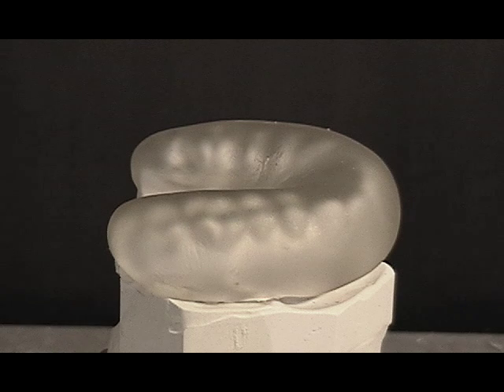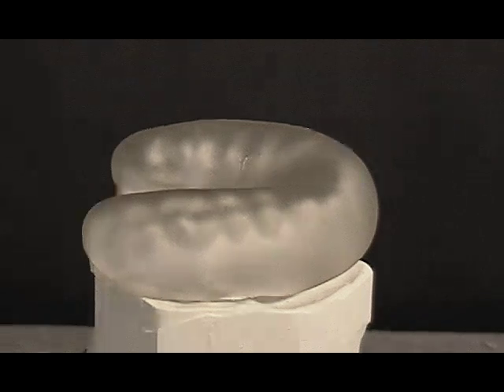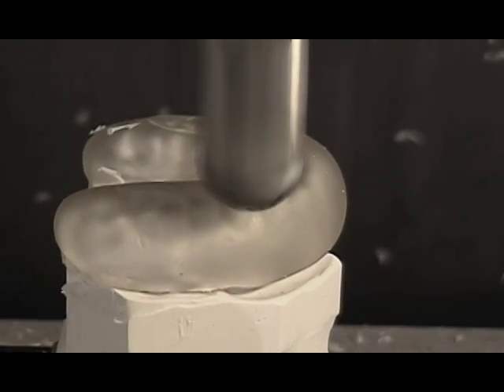The splint model is covered with acrylic and mounted in the milling machine. The acrylic is machined down to the splint surface with the accuracy of standard CAD-CAM systems used for crown and bridge.